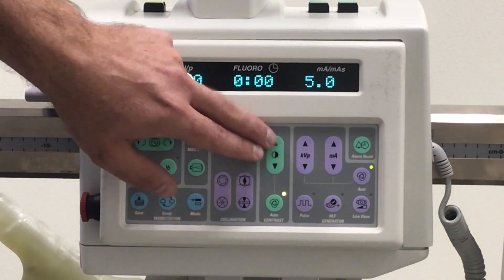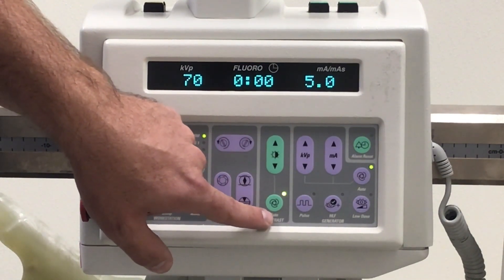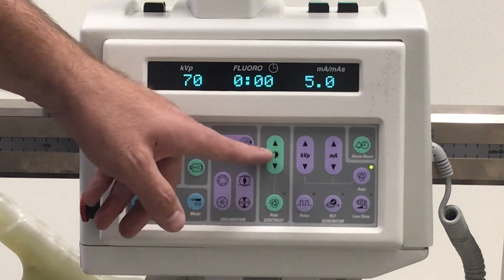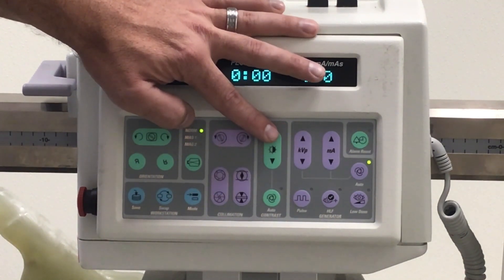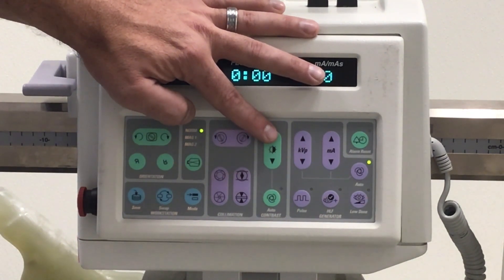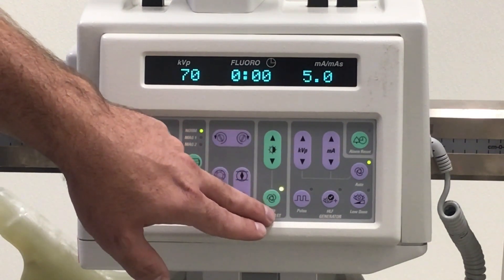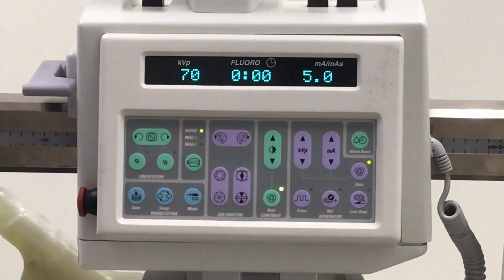This button will also activate smart metal. Leave the auto contrast button on and simply press up on this button. When you see the LED start to flash, that's your indication that you've activated smart metal. By activating smart metal, you're readjusting the values and trying to match the density of the previous image. To turn smart metal off, it's a two-tap on the auto contrast button — one, two — and then you're back to normal.